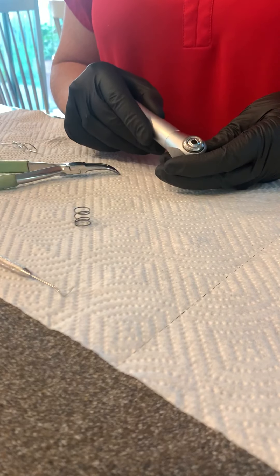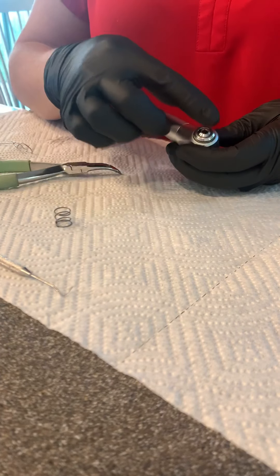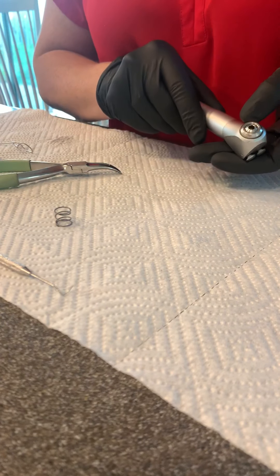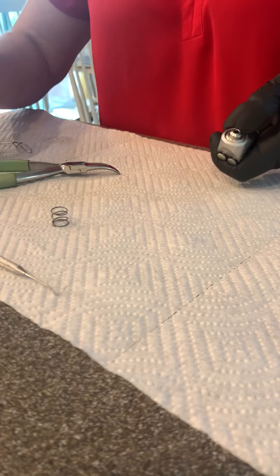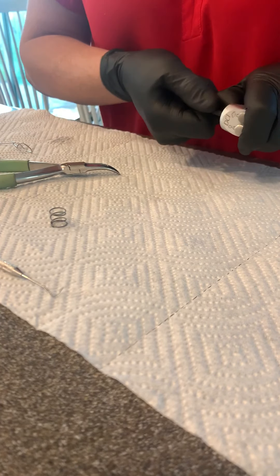The second part of your kit has a large spring and two O-rings. This is for the syringe portion of it. Again, depress. This is a 5/32 size Allen, counterclockwise.